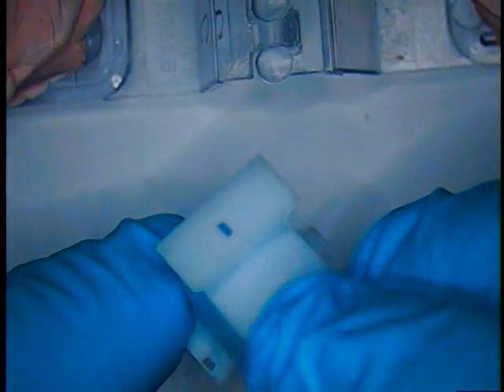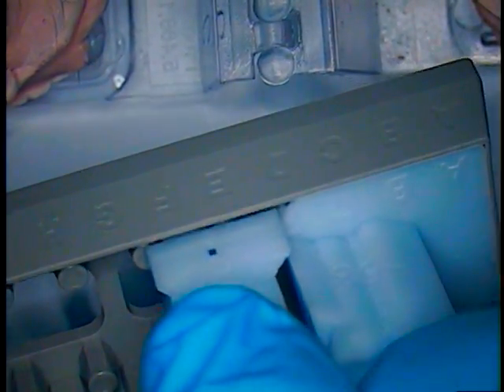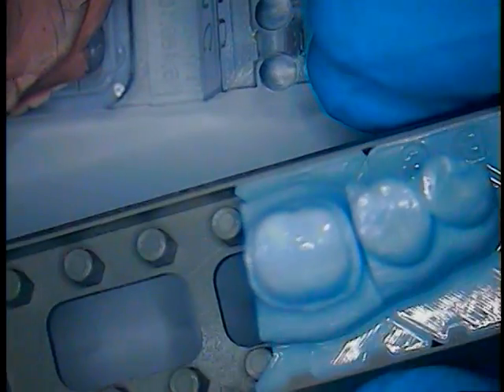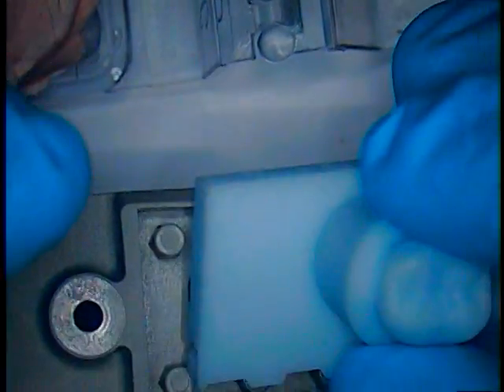And then again, here's the die itself. This one says 758. Should be some lettering on that. There they are. D, E, and F. This is partial lettering. That slides in like that. And then of course the last part, let's see if we can see the lettering. Oh, there it is. Okay, so we have part of the F, the G, H, I, and J. So we'll line those up and push them into place like so.